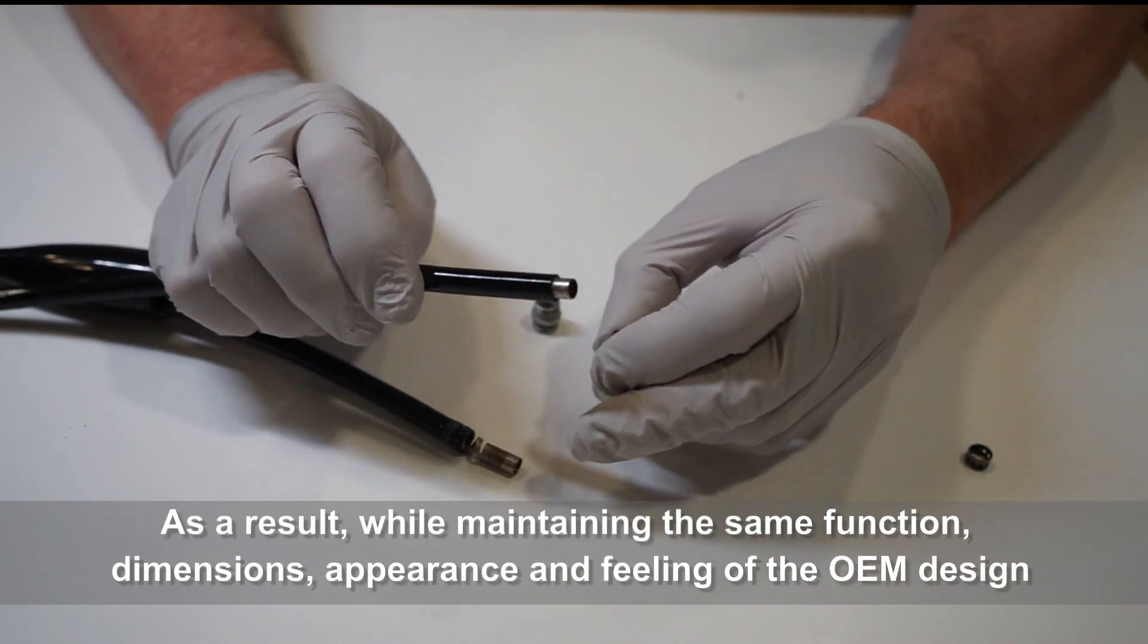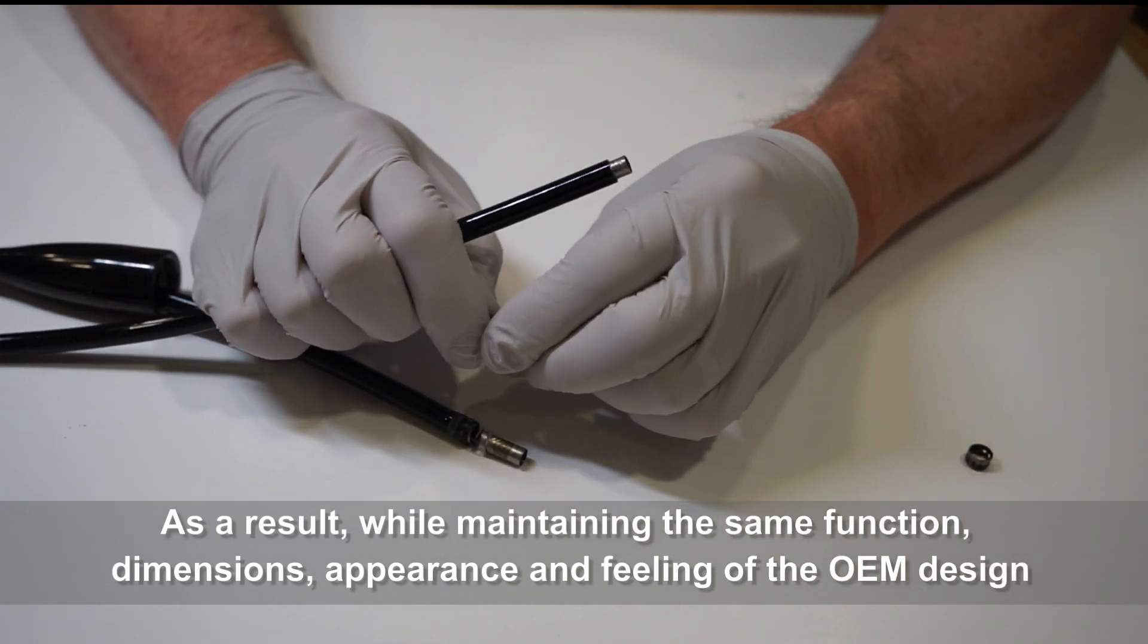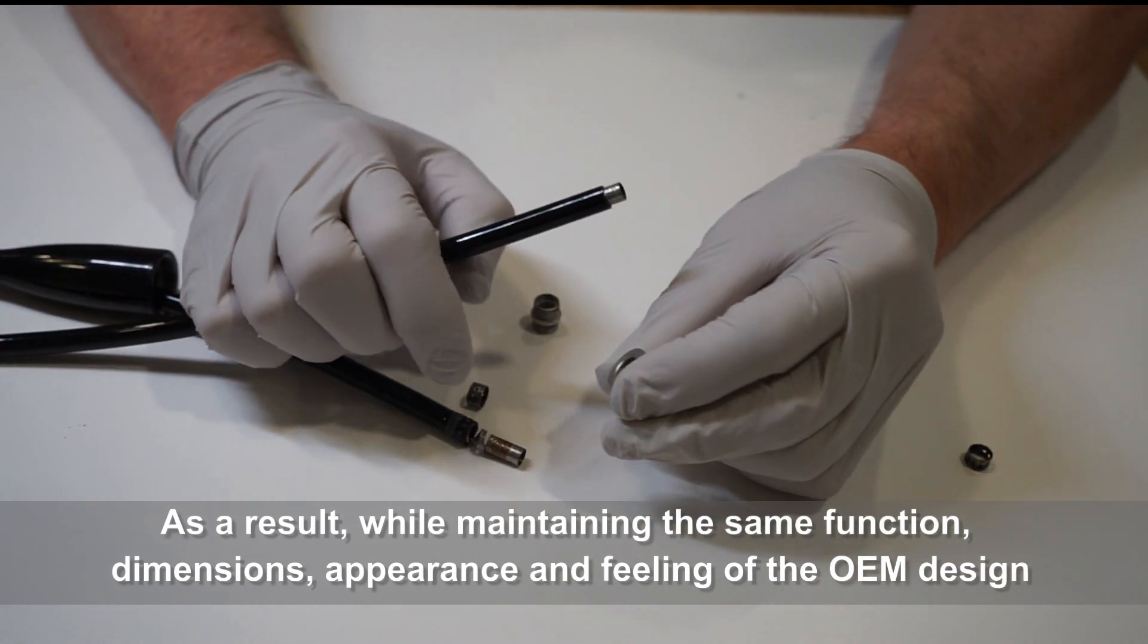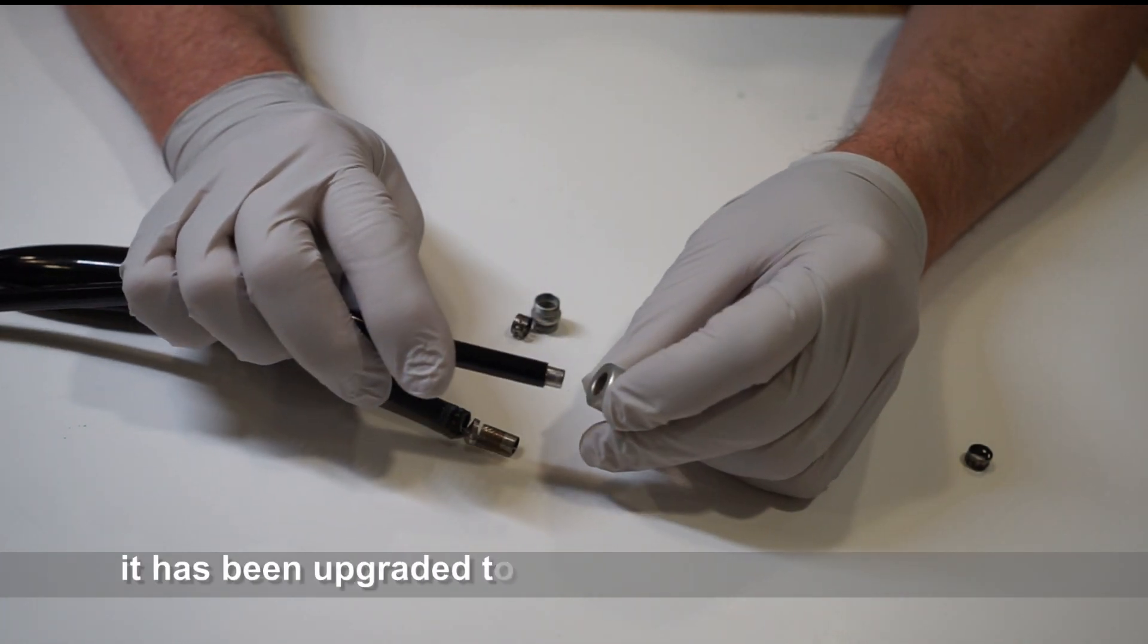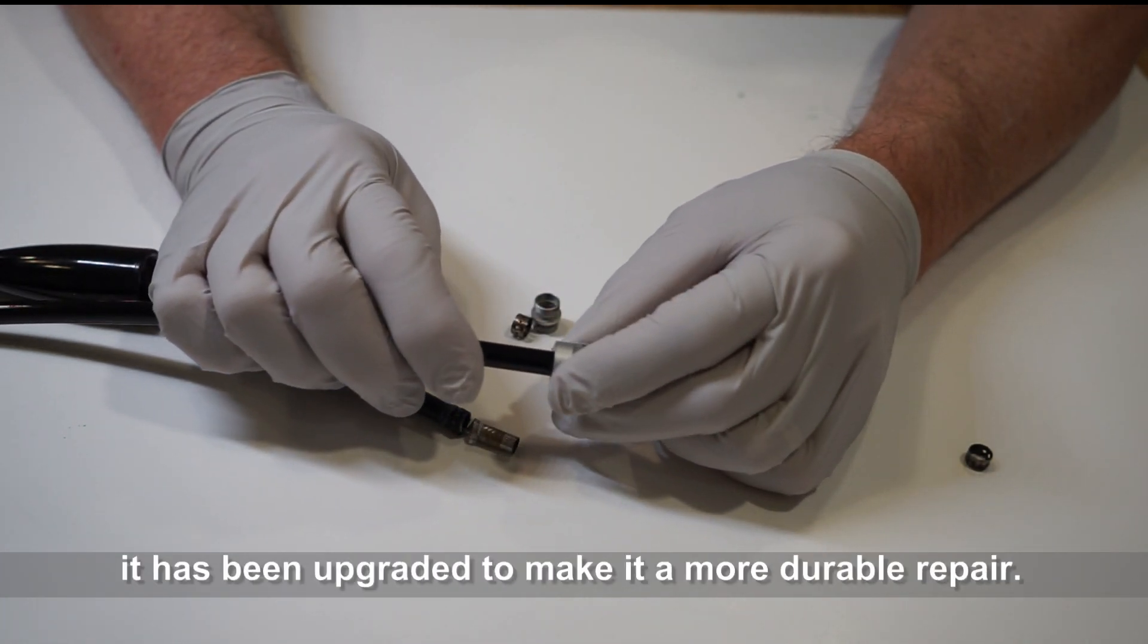As a result, while maintaining the same function, dimensions, appearance and feeling of the OEM design, it has been upgraded to make it a more durable repair.